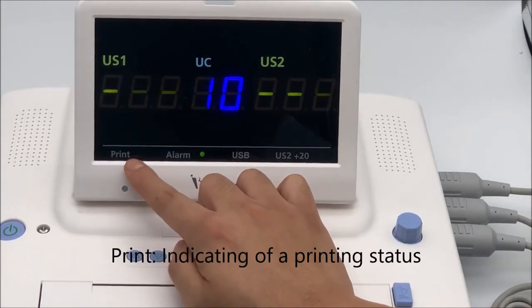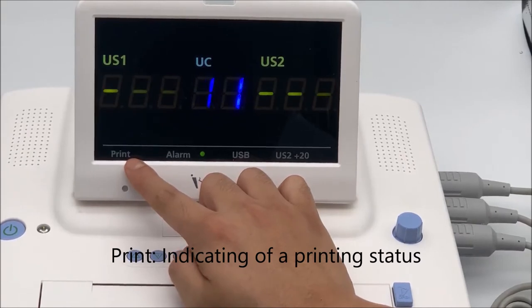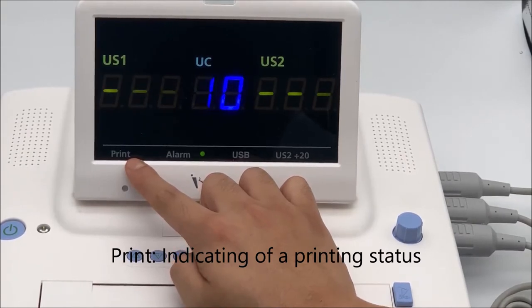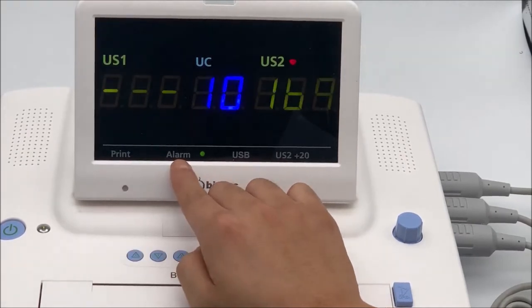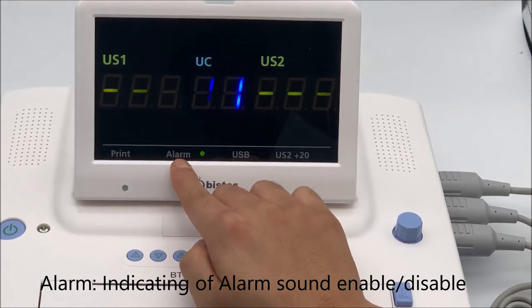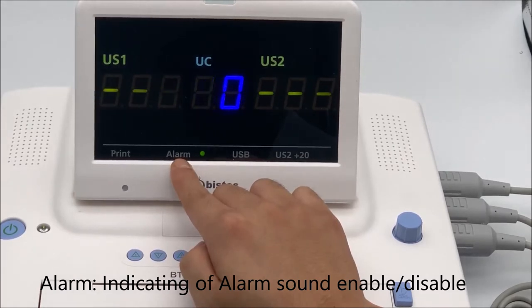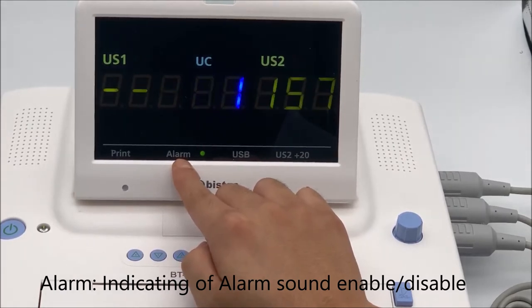Print icon: indicates printing status. Alarm icon: indicates alarm sound status — enable or disable.